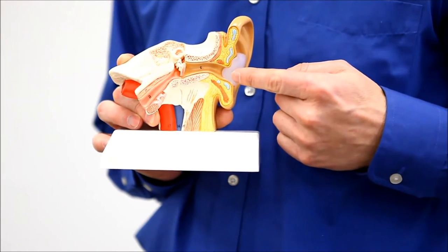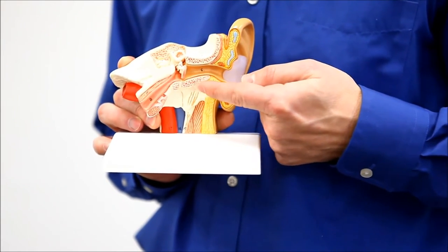Do not insert the ear plug into the ear canal, just cover the outer ear. Make it nice and flat, and you're good to go. It's that easy.